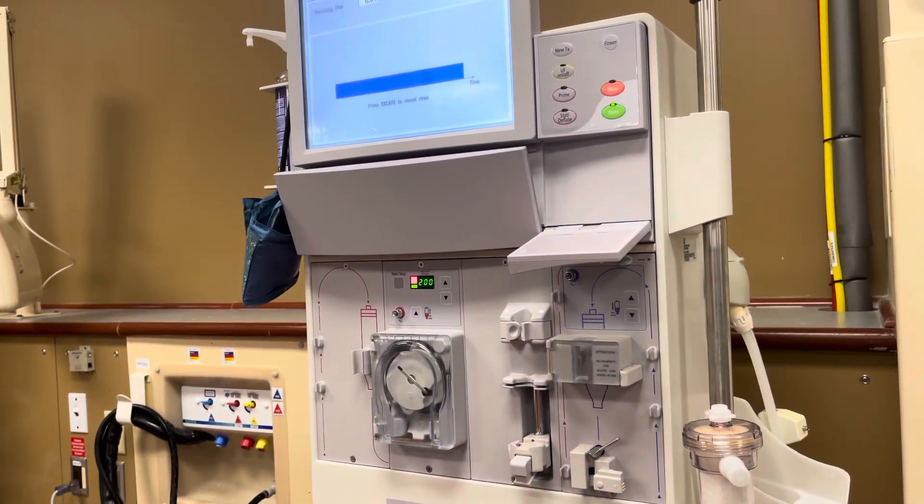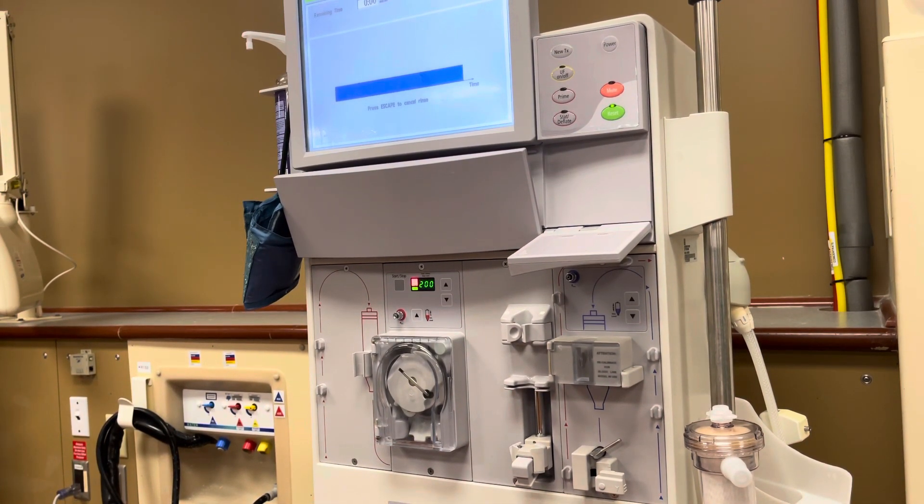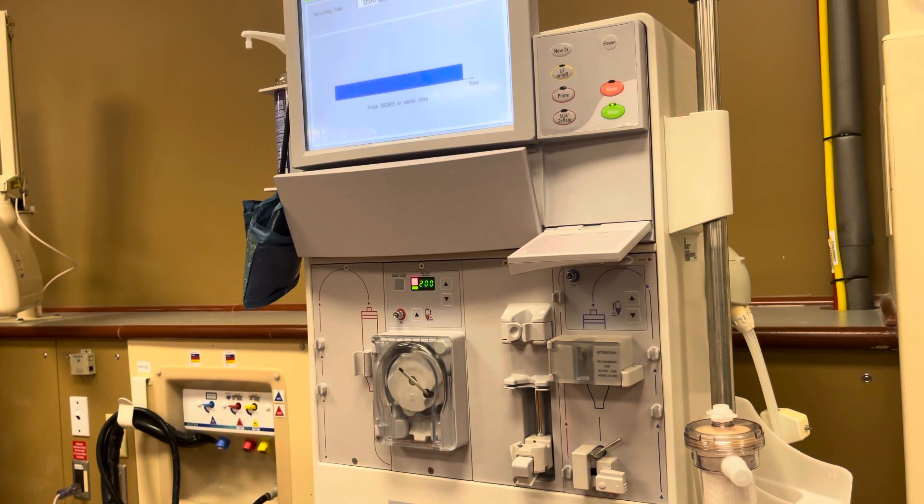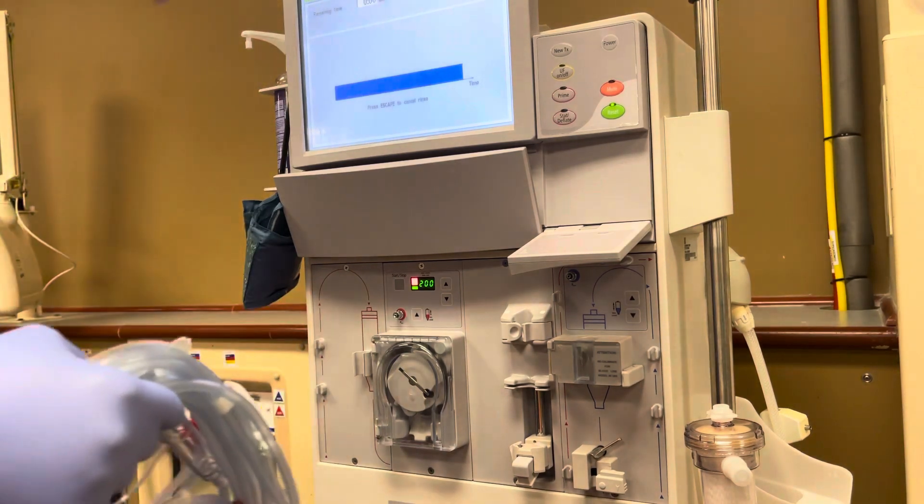Okay, let me try — this is rough, I didn't set up my tripod but I just wanted to show you guys. This is what the saline comes in and this is the dialyzer. There are different dialyzers, we just don't have them all here. So let me get started before everybody starts popping up — hopefully I'm in good view.